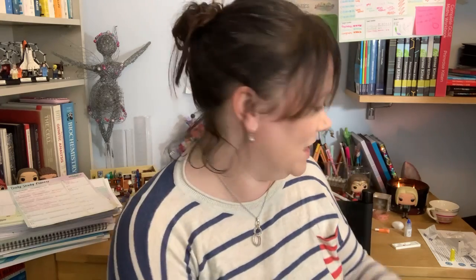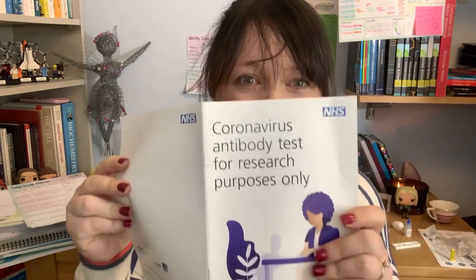Because I'm not breaking lockdown, I'm not going anywhere. So I logged onto the website — yeah, sure, I'll stick a prick in my finger — and then the other day it just arrived through the post with instructions and thingy bobbies. And we will see if I have had COVID-19, because this is an antibody test, so it will tell me whether I've had it recently or in the past. There are two different types of antibodies — IgM doesn't stay in the body for very long, so that shows if I've had it recently, and IgG, which is usually longer lasting, so if I've had it like a long time ago.